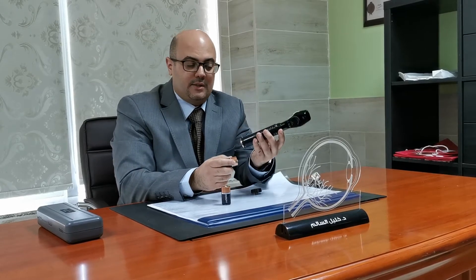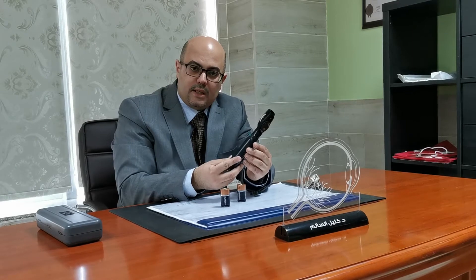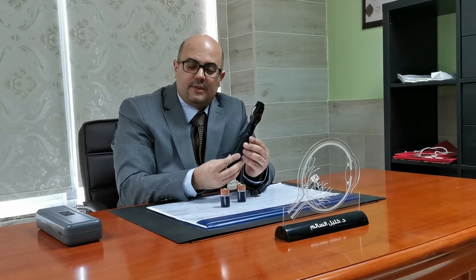Whatever you are seeing here is just an extra accessory. The principle of this device is that light coming from infinity will hit the retina, and light from the retina should go to infinity in an emmetropic eye. So if you don't have a refractive error, this machine will allow you to visualize the optic nerve and the fundus very well.